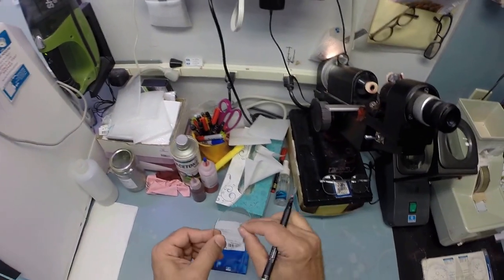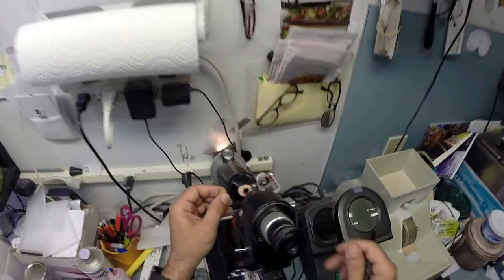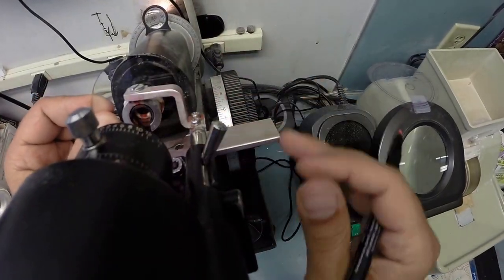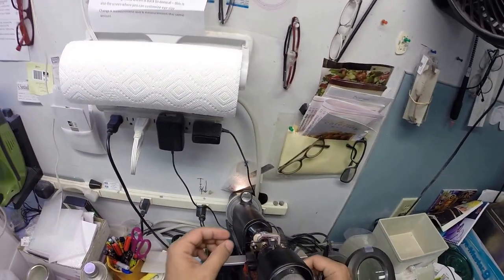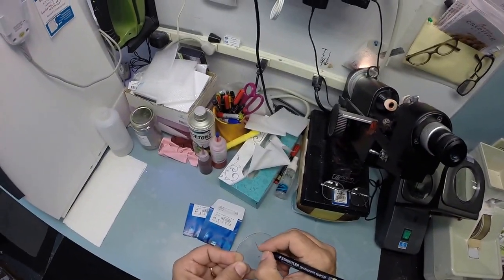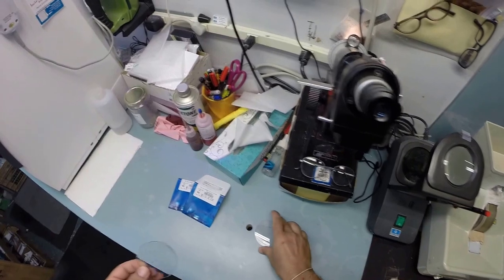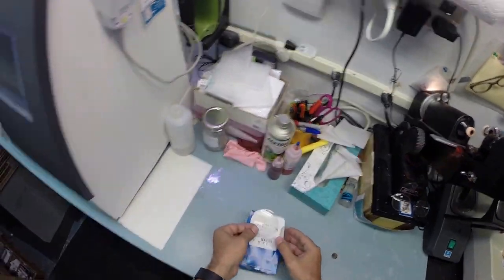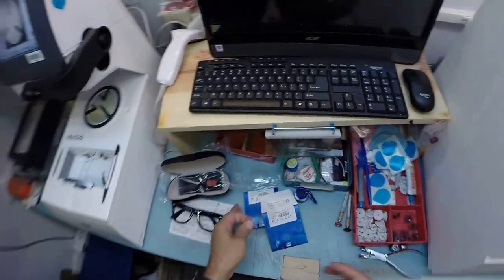Excuse me. Let's do the same thing now for the left. Take it out of the protective packet, hang on to that sleeve, put it into the lensometer, find the optical center of the lens, put a dot on it, darken that dot so you can see it at home. And let's put an L on there for left. Or simply not right. Just like me, I ain't right either.